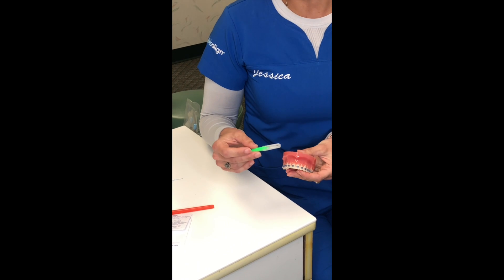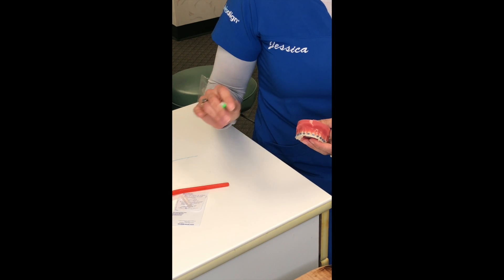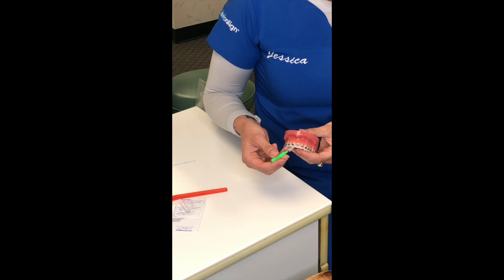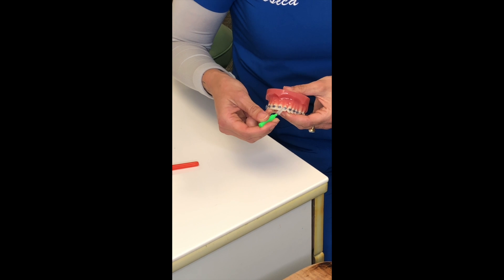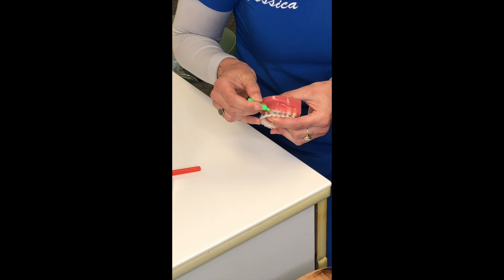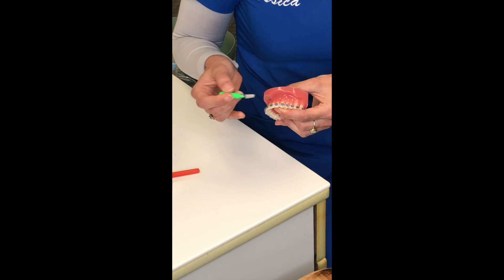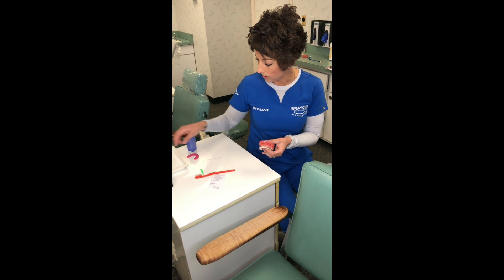We're also going to give you what we call proxy brushes, and we always keep these out front in our mailbox if you run out. You can use these with toothpaste or just as is. What you do is just go under the wire, and it helps keep the interproximal area nice and clean. Along the sides where there are those little hooks, it'll help get any food trapped under there.